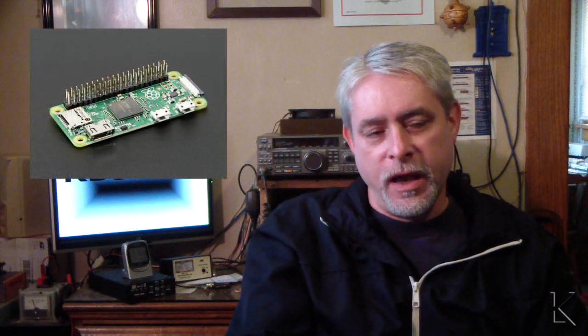It uses a Raspberry Pi as the computer, has an input on the front for a switch. I'm going to demonstrate it with my Morse code key, but it could be any type of switch — a squeeze switch, a bite switch, a blow switch, or even circuitry that senses a muscle twitch from a blink. Any way that somebody in that situation could activate a switch in a pattern will be a perfect input for this device. And what it does is it translates Morse code into speech.